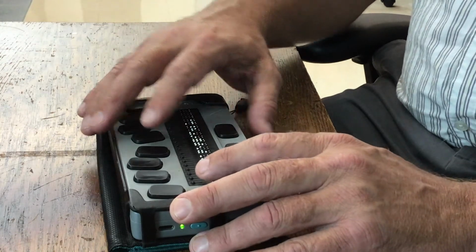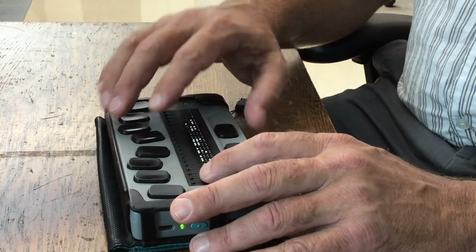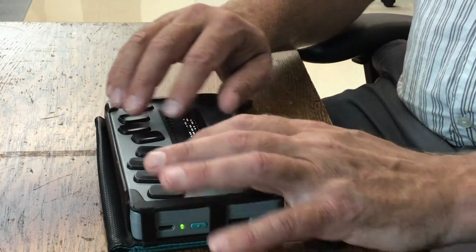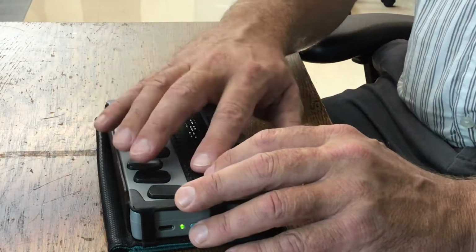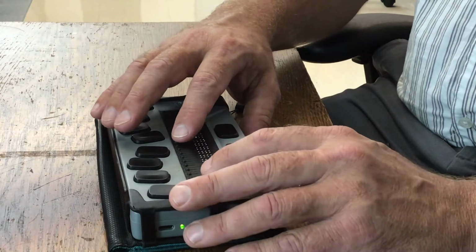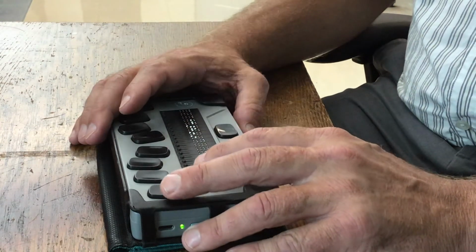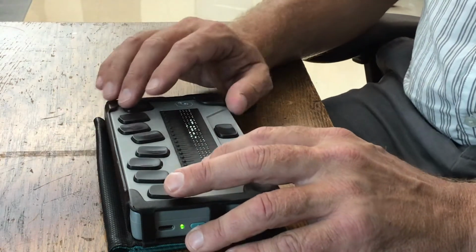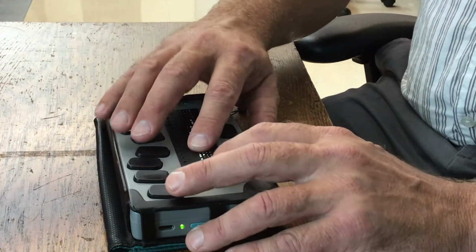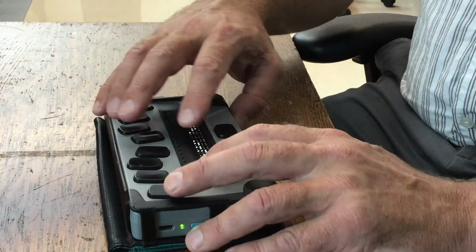This is also where you would copy files. If I'm in File Manager, and I press D with space, it's going to say Storage, and if I go down, mine says SD because I've had an SD card in there. If I had a USB thumb drive in there, it would say USB. So I would press Enter on that, and then I would go down to the file that I wanted to copy.